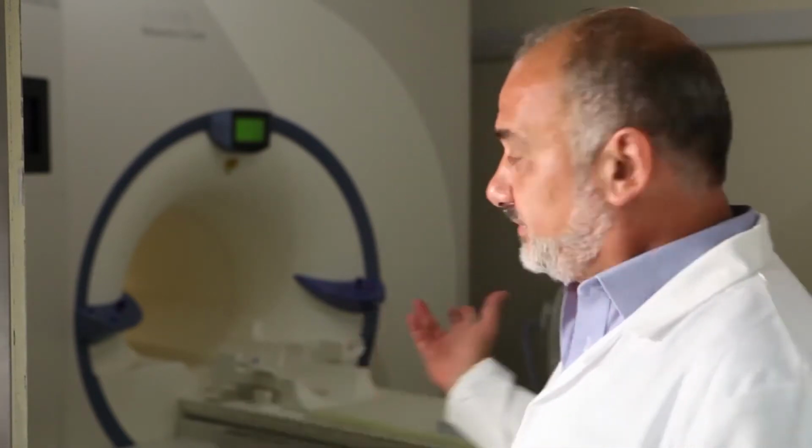We're about to show you the basic quality control tests for a clinical MRI system, the system you hear. This will take approximately 3 hours. It's going to be a real presentation of the quality control test. We're going to do it in a way that we think is the easiest possible, in order to see and understand the whole procedures.